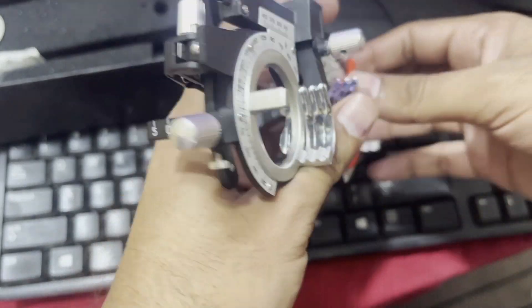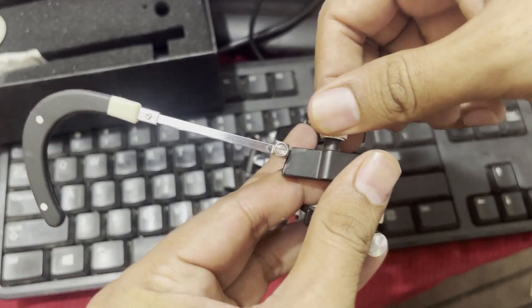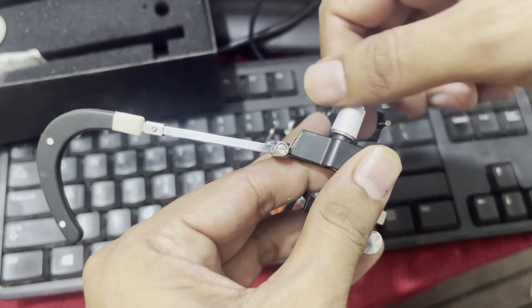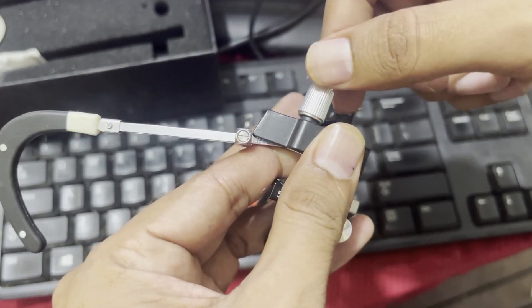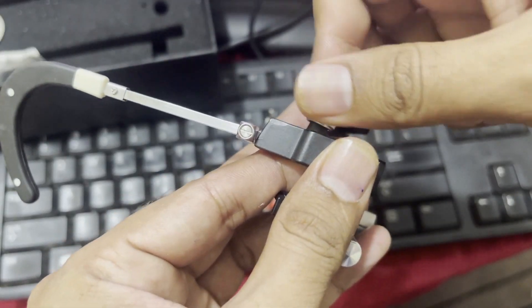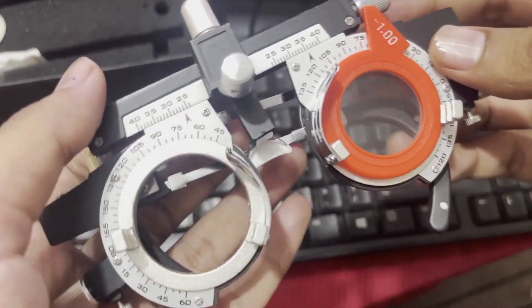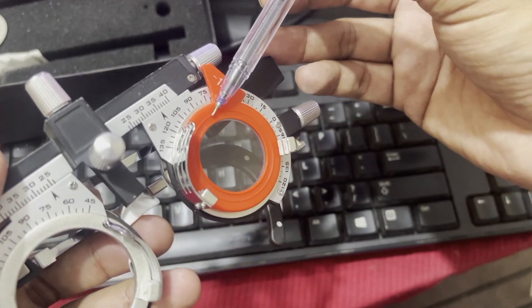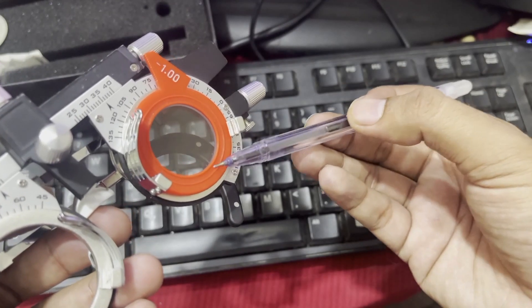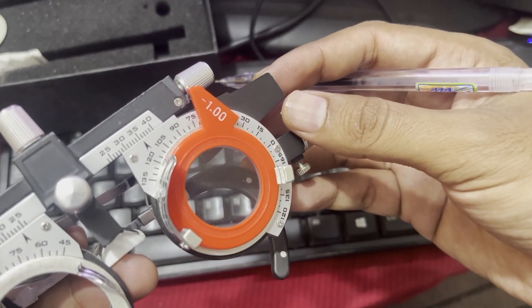Finally, the knob at the back side of the frame: as we rotate this knob, the lug goes downward, and rotating it in the opposite direction moves the lug upward. These knobs are used to maintain the pantoscopic tilt — the angle between the top of the lens and the bottom of the lens, indicating how much the bottom of the lens tilts toward the patient's cheeks. That angle is called the pantoscopic angle. This covers every concept regarding the universal trial frame.